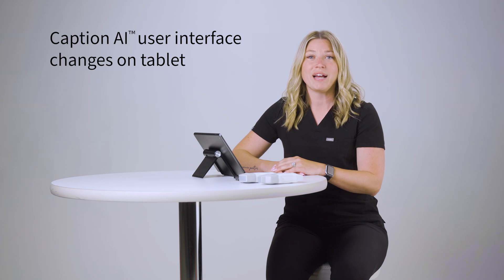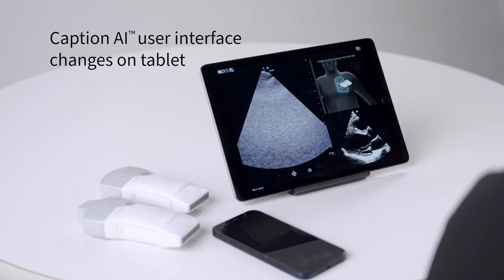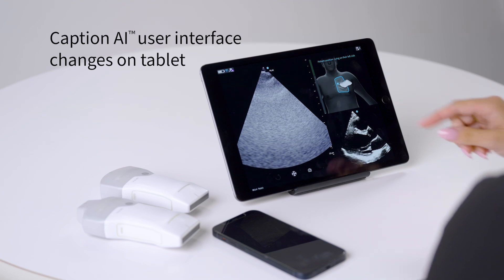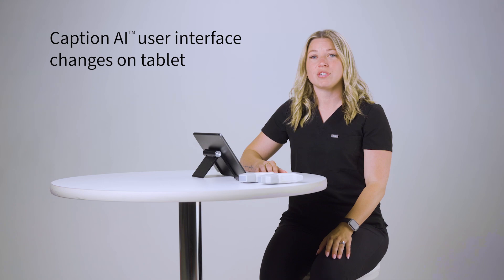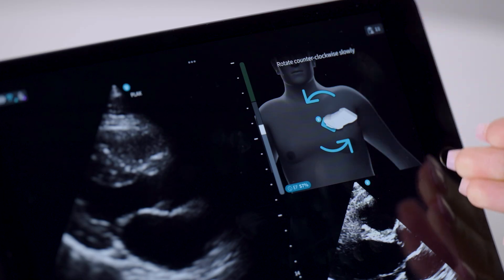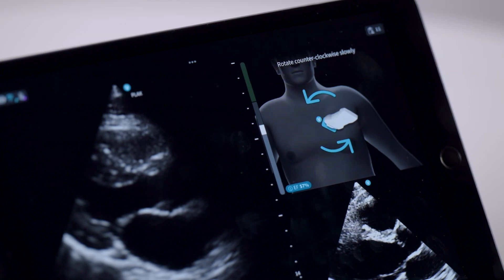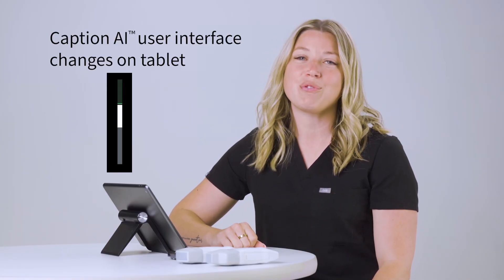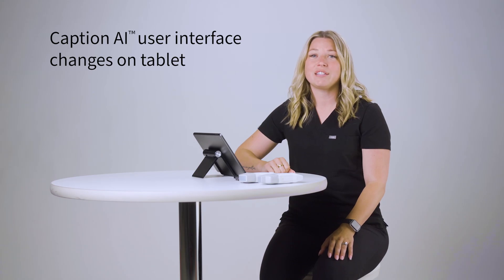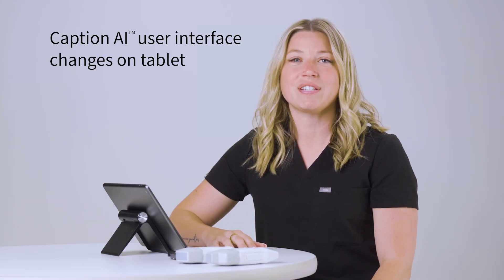For those already using Caption AI software, here are some changes to expect on the tablet user interface. The initial probe placement guidance picture has been improved to show which intercostal space the probe should be in. The static and prescriptive guidance features have moved to the top right side of the screen, making it easier to see all your guidance in one area. In this same view, you'll find the quality meter — it now moves from white to green to give you real-time feedback.